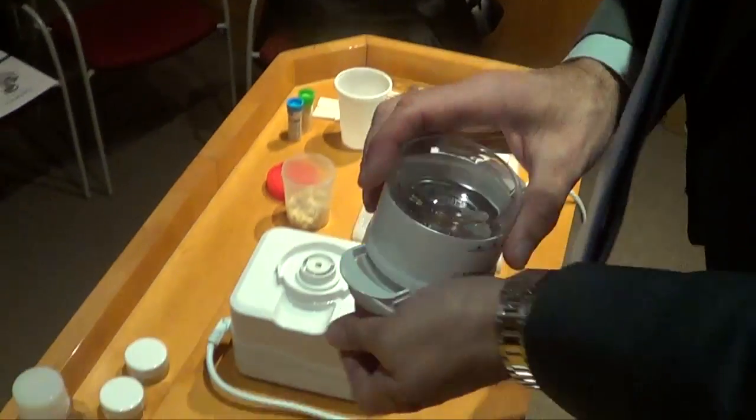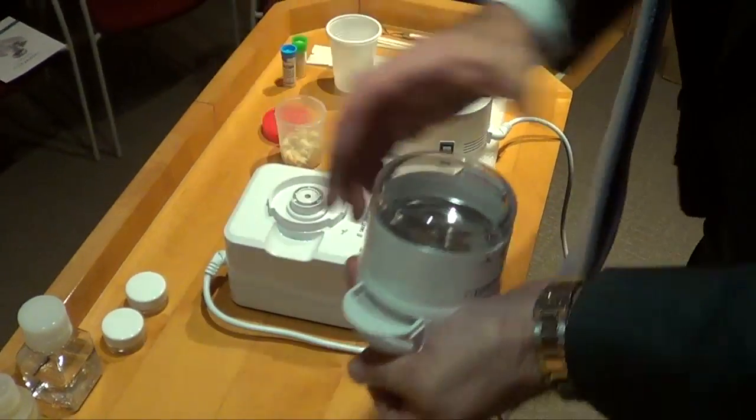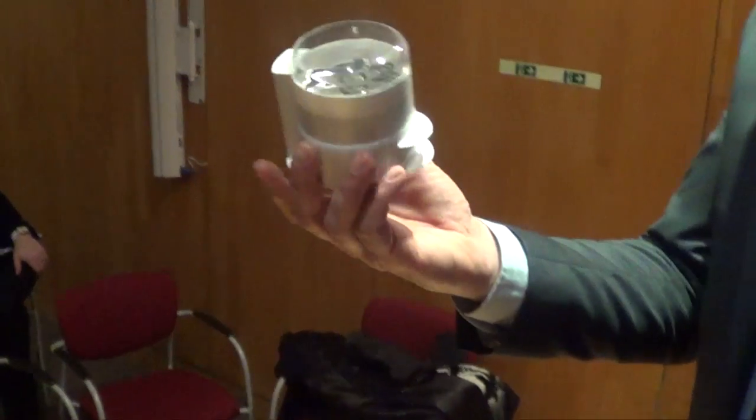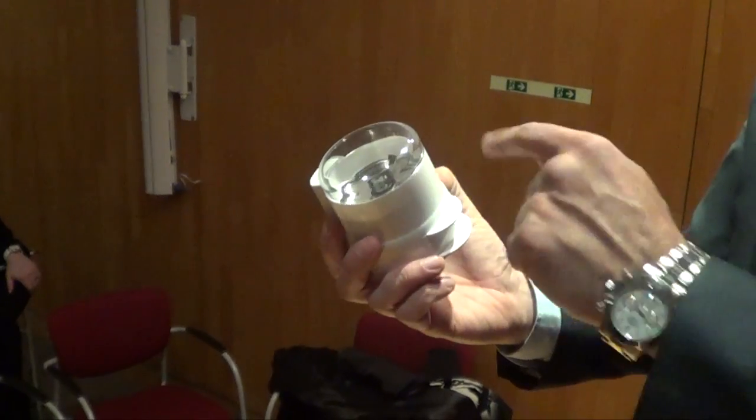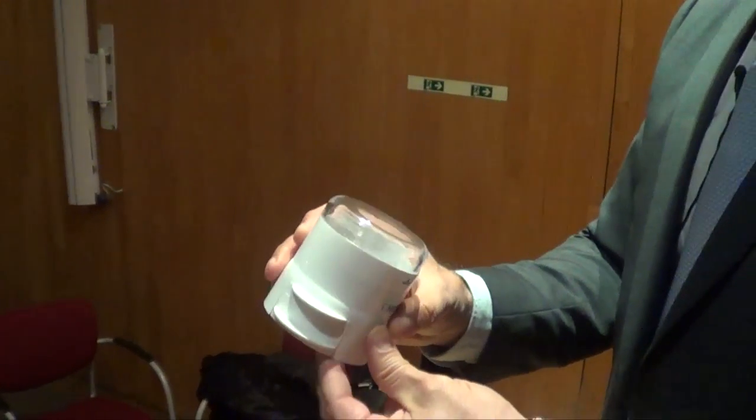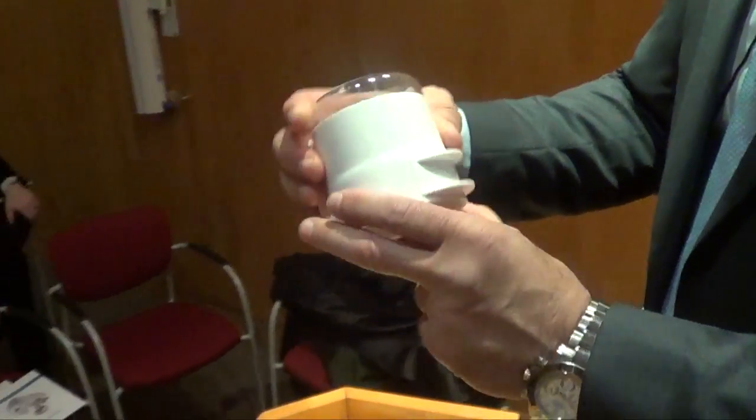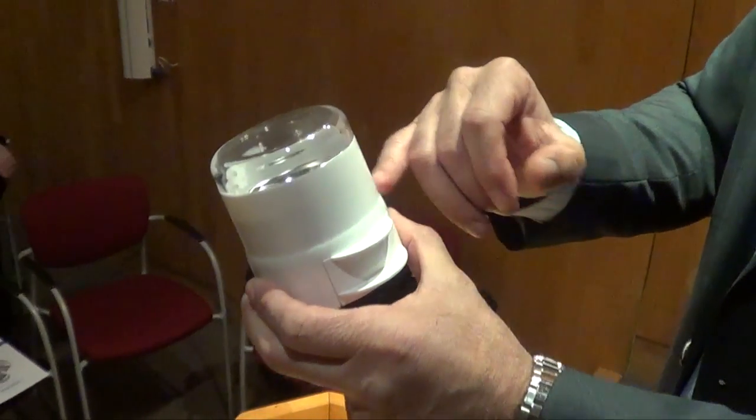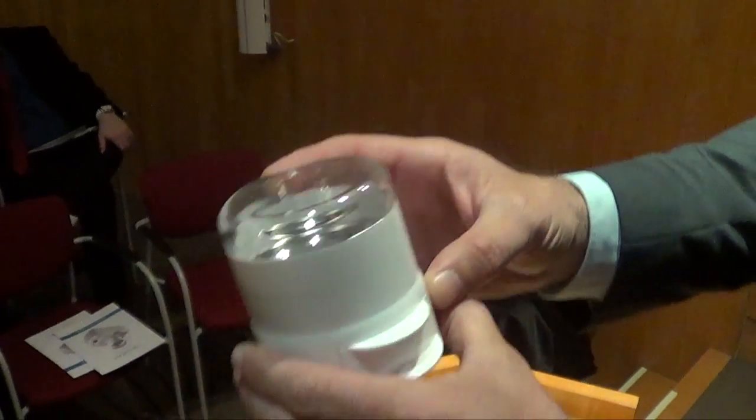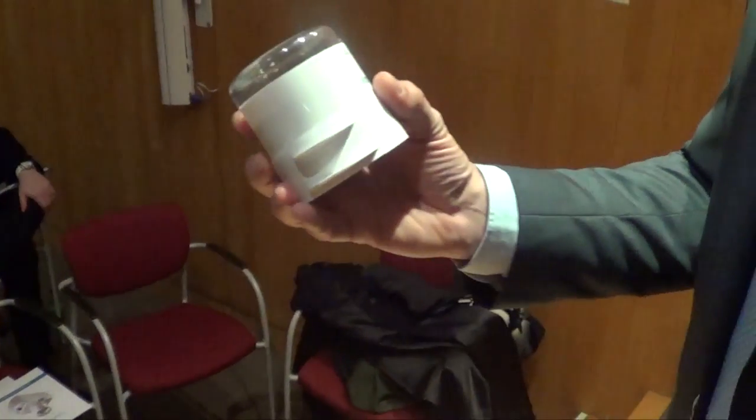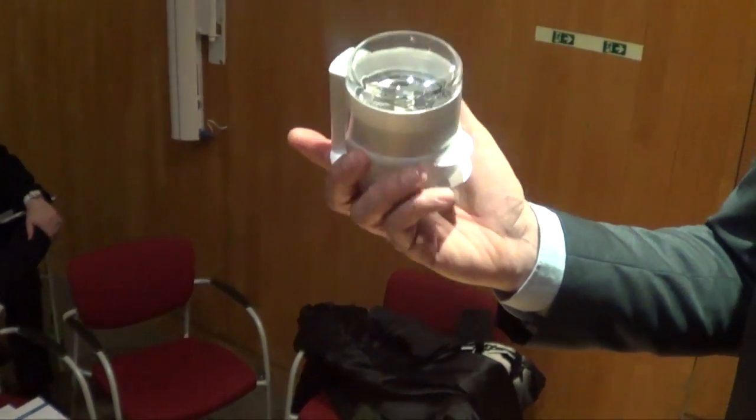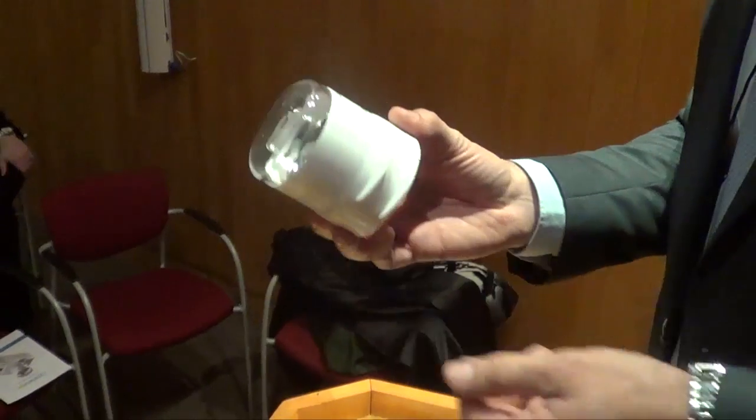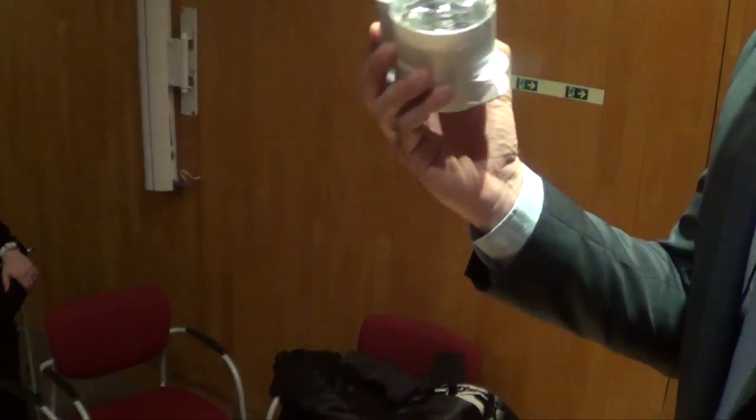So this is the machine, the base of the machine, and this is the disposable container. Because of the chain of places where the part gets after vibration to get the needed size, it's very difficult to sterilize it. Even to clean it mechanically is difficult, so we decided not only for business reasons but to do it disposable.